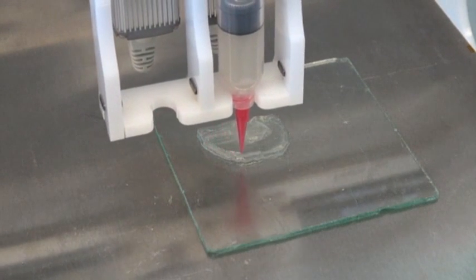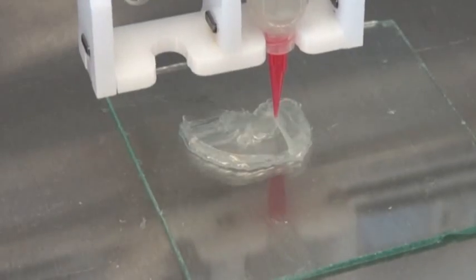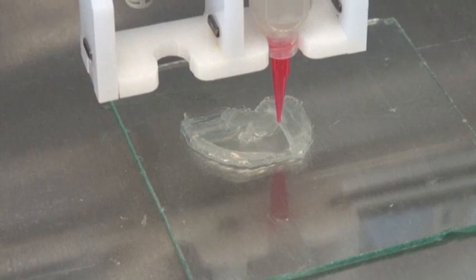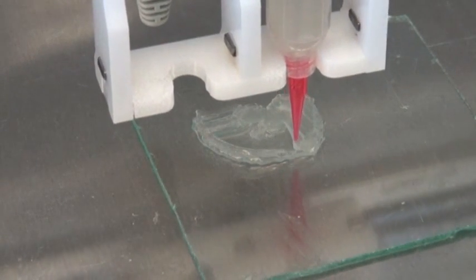The idea of being able to use inks, for example, that are alive, is really what takes us to the next level. What is coming out of the printer is alive exactly when we print it, it's alive when we grow it in the incubator, and it's alive when it goes in the patient.